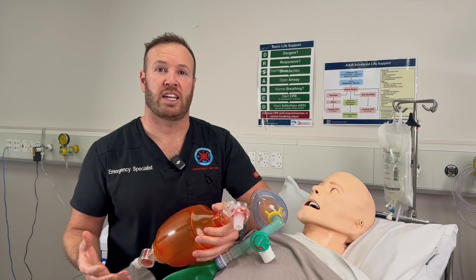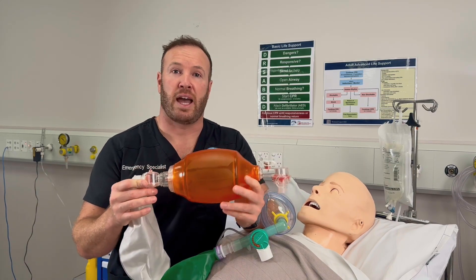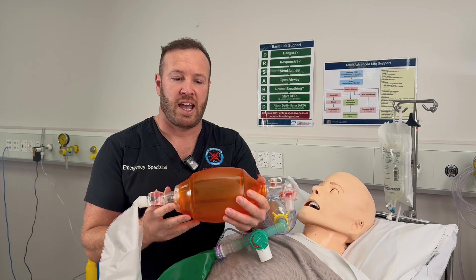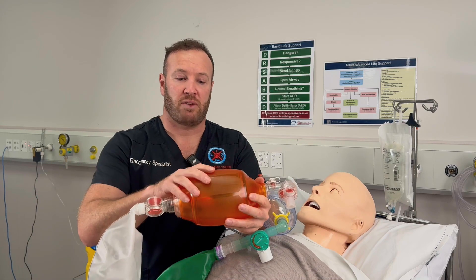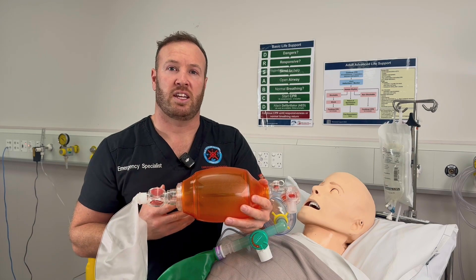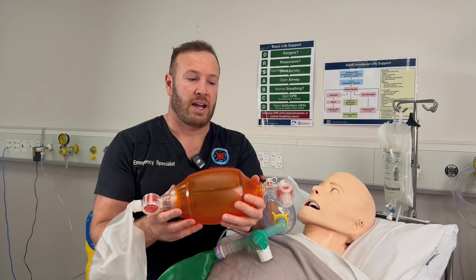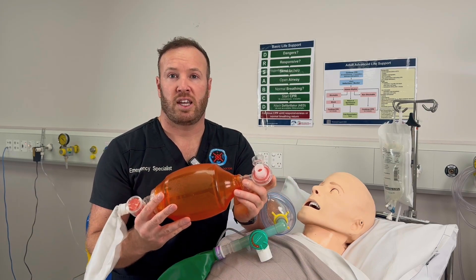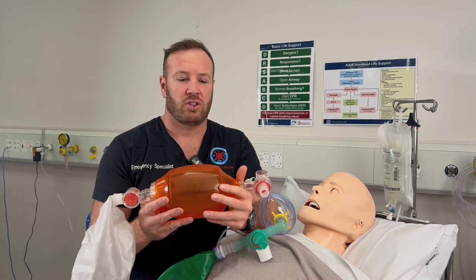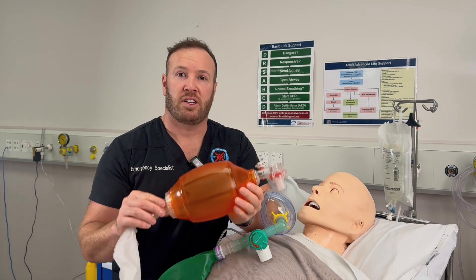Before we look at the Mapleson C Circuit, let's look at a device we're probably more familiar with that you might be using already. This is a self-inflating bag. We obviously still have these in our emergency department — we use these for critically unwell patients in cardiac arrest and for transfer, because being self-inflating it doesn't require fresh gas flow like the Mapleson C does. There are some disadvantages when looking at its use as a pre-oxygenation or procedural sedation device. It has valves within the circuit, which means for the spontaneously breathing patient you have to overcome resistance to those valves. It also doesn't give us any feedback about the patient's respiration — and that's one of the main advantages of the Mapleson Circuit.